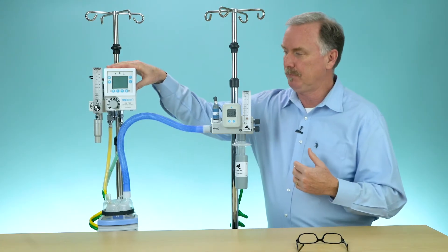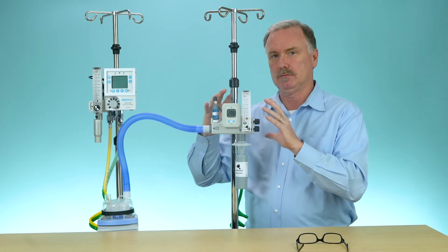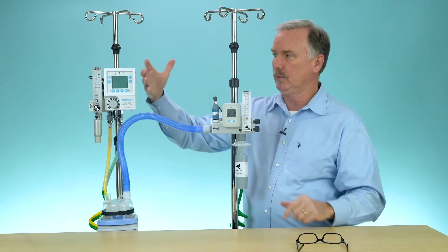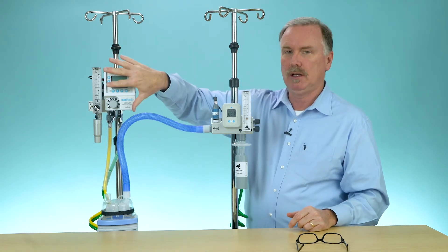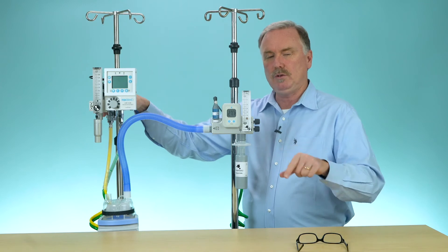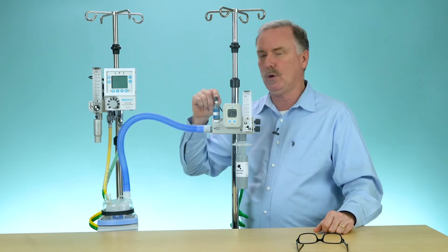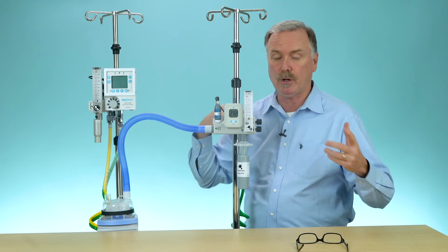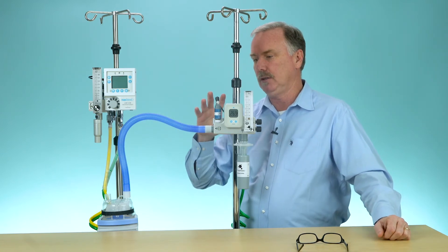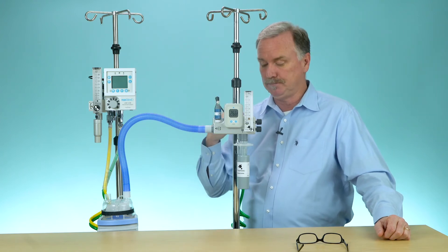You'll notice that in both of our units everything you need is right here: a flow meter, an analyzer, and a pole mount bracket. Both units are mounted and ready. So when you need to set up high flow, both of these are going to be quicker than a standard setup where you need to gather parts and pieces. Be confident that when you have a Max Blend 2 or a Max Venturi, everything is ready when you need it.